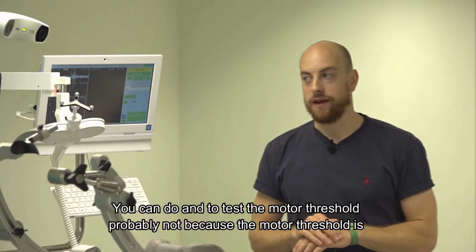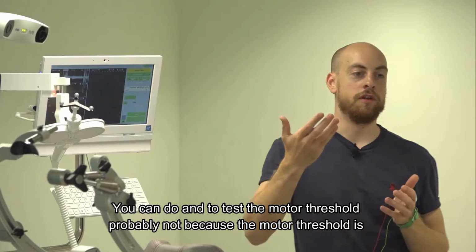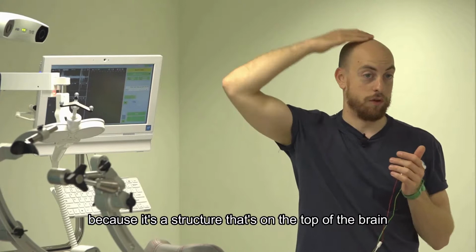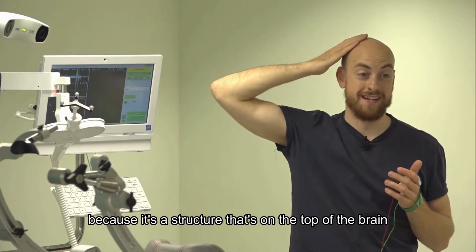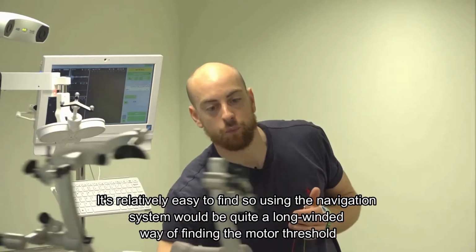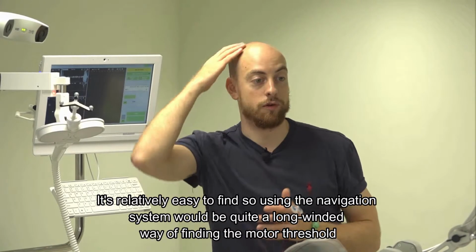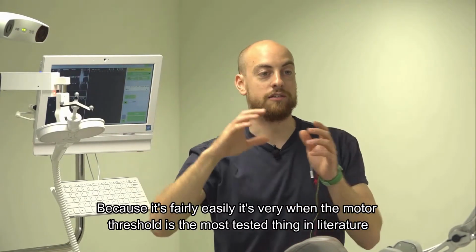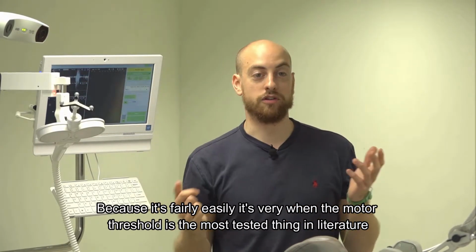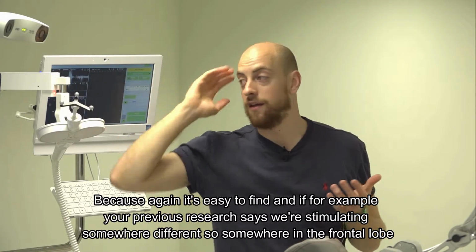You can do. To test the motor threshold, probably not, because it's a structure on the top of the brain, so it's relatively easy to find. Using the navigation system would be quite a long-winded way of finding the motor threshold, which is the most tested thing in literature because, again, it's easy to find.